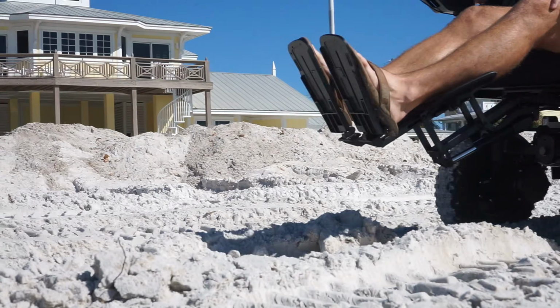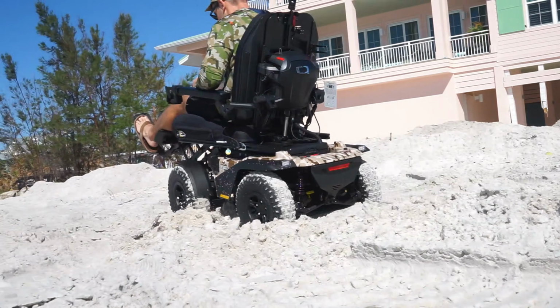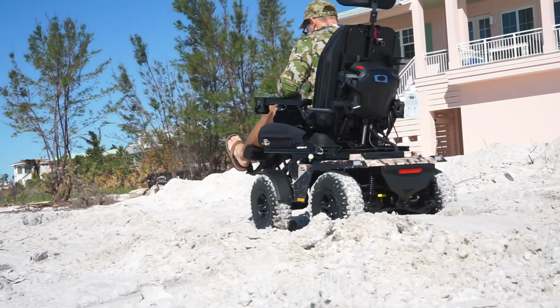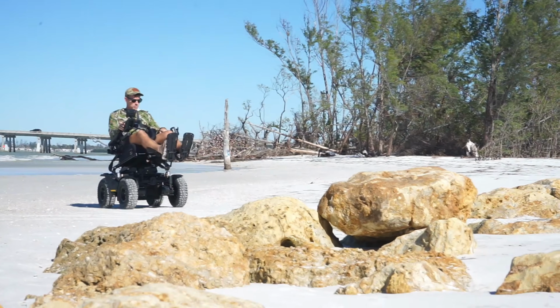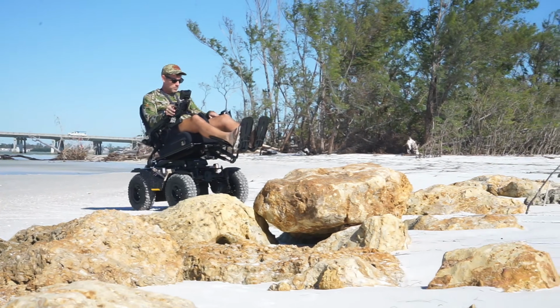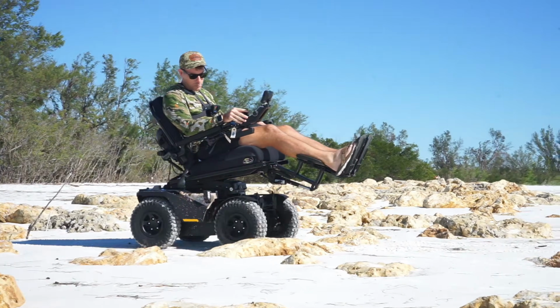Now the last drive configuration we're going to go over is the all-wheel drive unit called the Quantum Outback. Once again, we do sell these units new, so if you are interested in one of these, let us know. This unit is either going to have a 300-pound weight capacity if you have electrical seat functions, or if you go with the captain seat, which is kind of like a standard seat you would see on a regular power chair, then it's a 350-pound weight capacity. So either 300 or 350 based on the seating configuration.